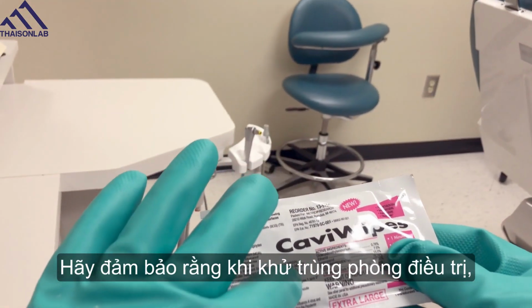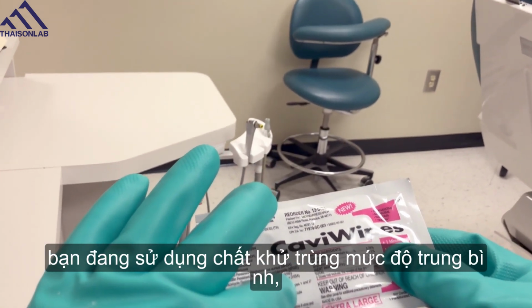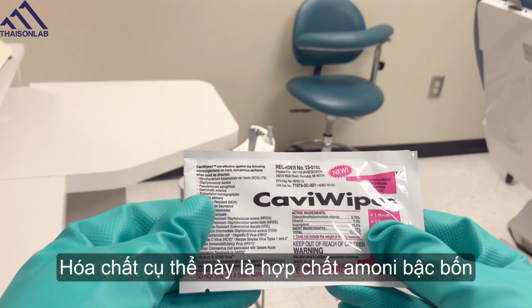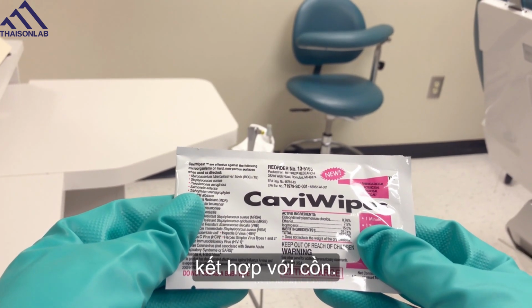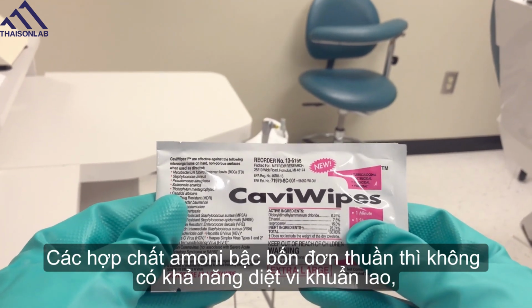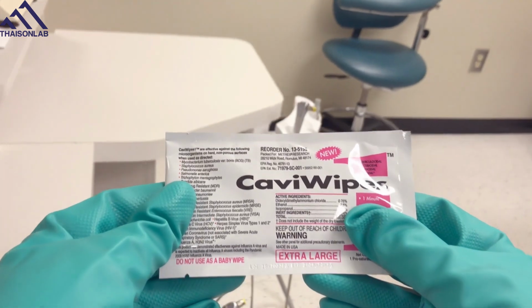Make sure when you're disinfecting your treatment rooms that you are using an intermediate level disinfectant. That means that it has a tuberculocidal claim. This particular chemical is your quaternary ammonium compound with alcohol. Quats alone are not tuberculocidal, so they have to be combined with alcohol to be effective.